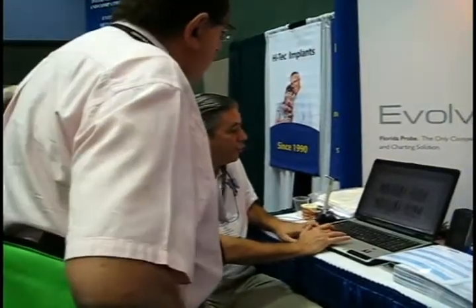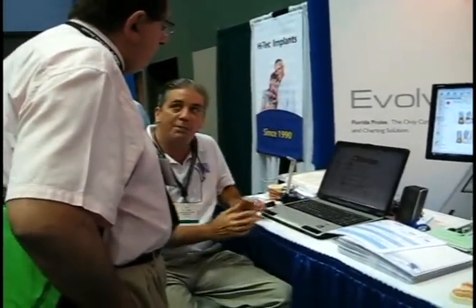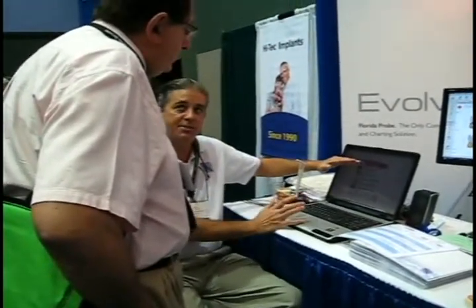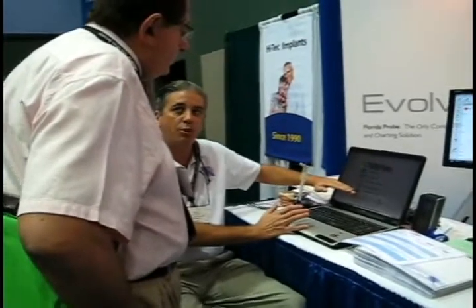We include a patient education component. There are five one-minute movies specific to perio that explain the diagnostic process using the system, the disease, the process, and the systemic correlation.